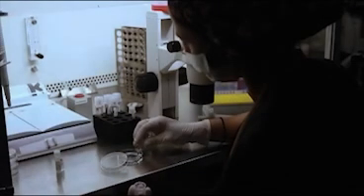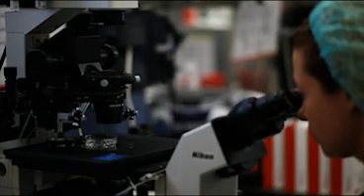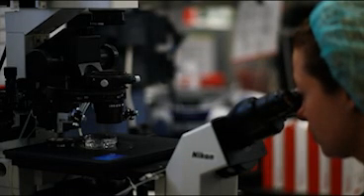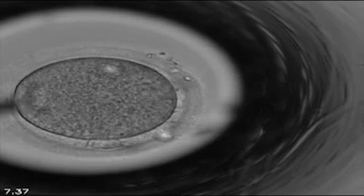In vitro fertilization is the bringing together of an oocyte and a spermatozoon in our laboratories. The male gamete comes into contact with the female gamete to create an embryo. The process consists of six phases.